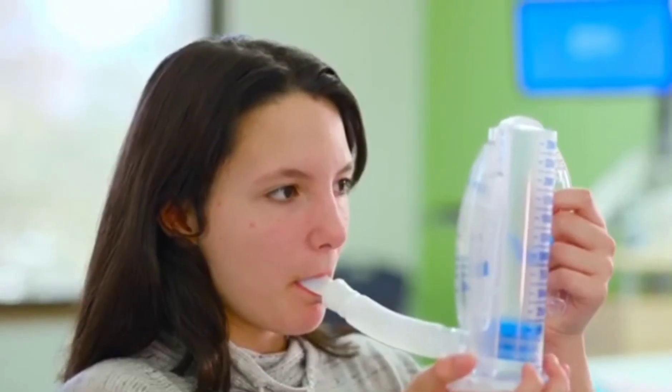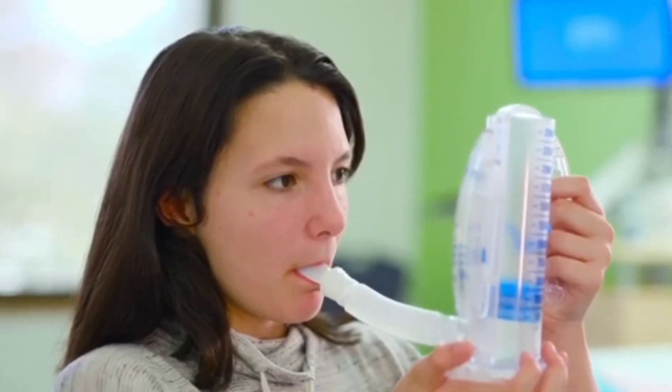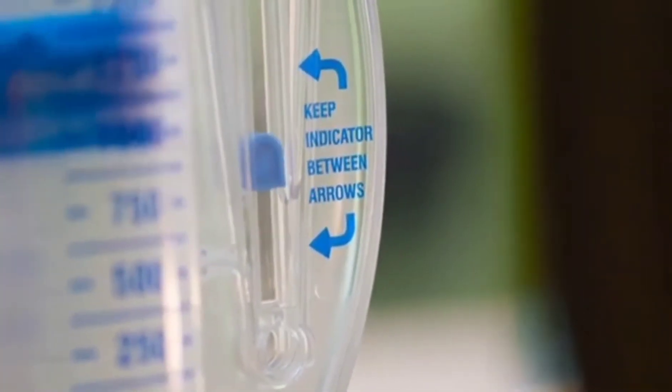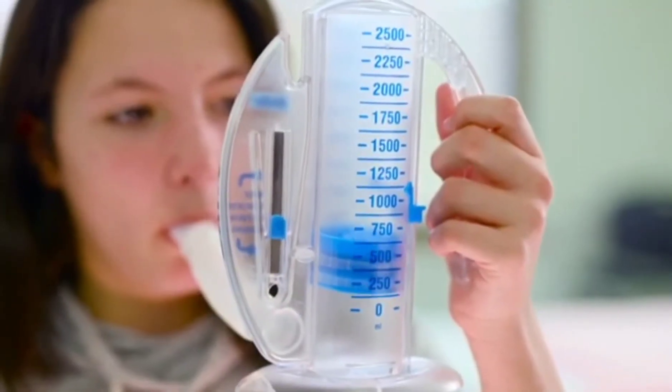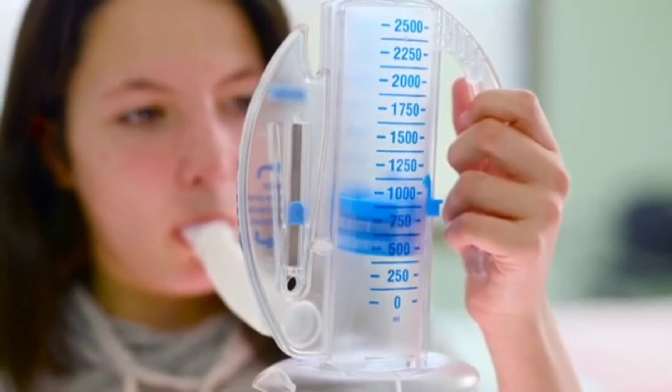Breathe in slowly through the mouthpiece like sucking through a straw. Breathe slowly enough to keep the ball in your target zone and breathe deeply enough until the piston gets to the mark your care team has set for you.